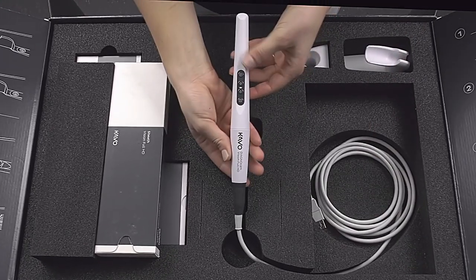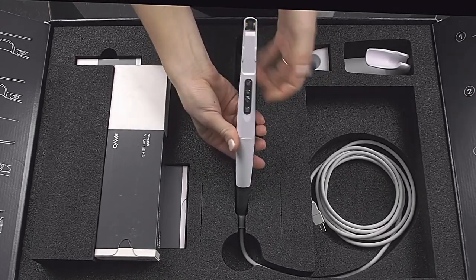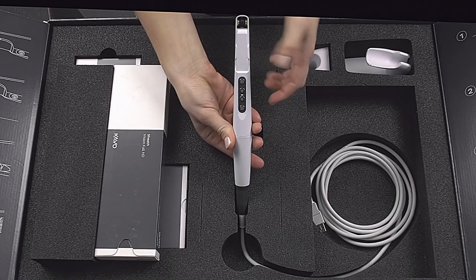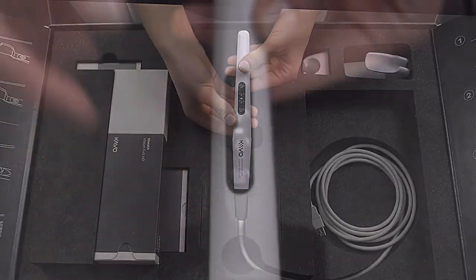The two touch panels on the top and bottom of the camera allow easy recordings in the upper and lower jaw. In addition, the buttons' function can be configured however you want, to suit your personal working style.